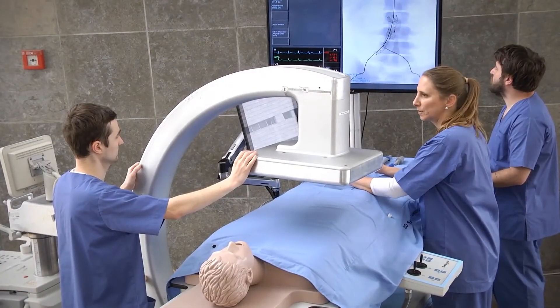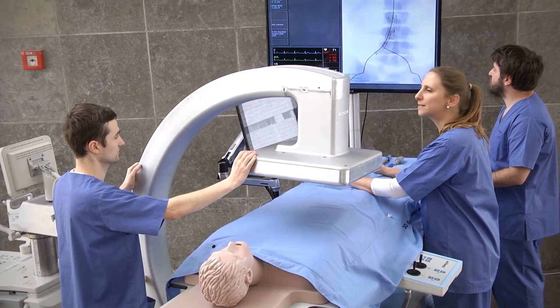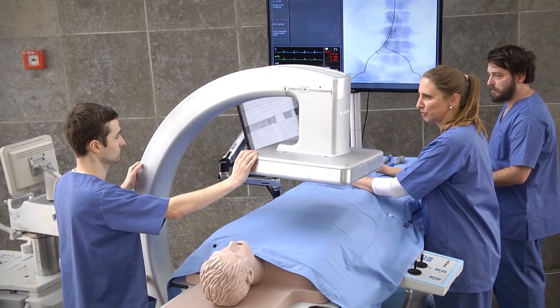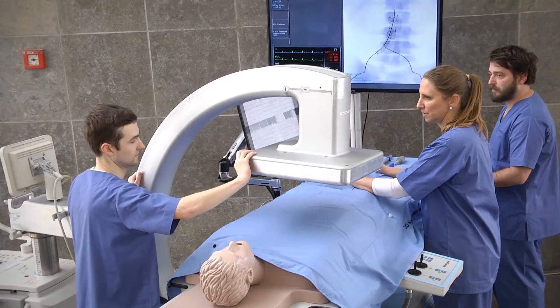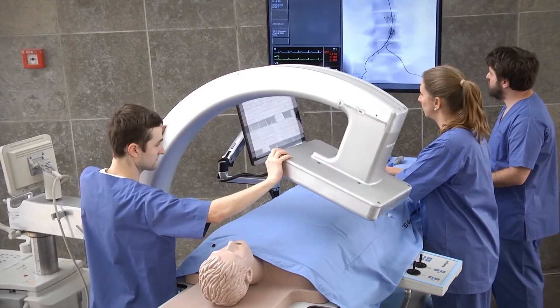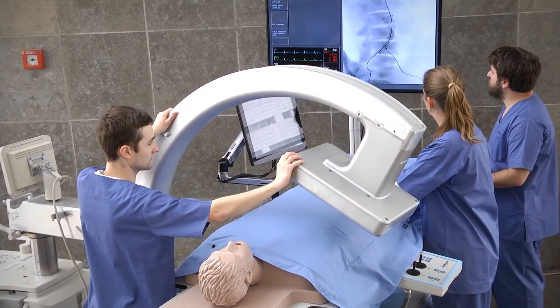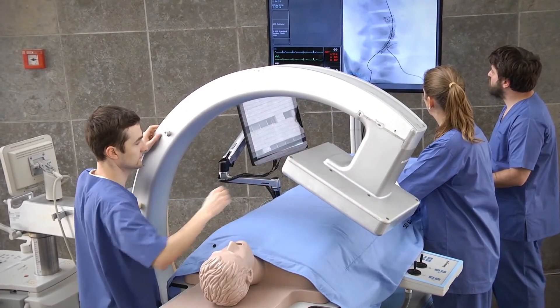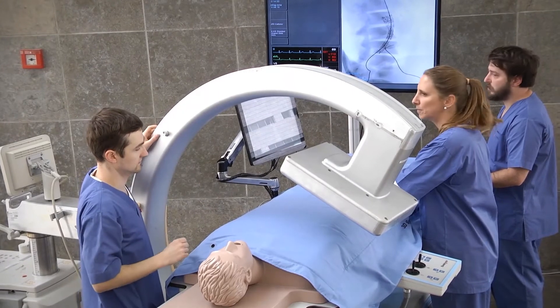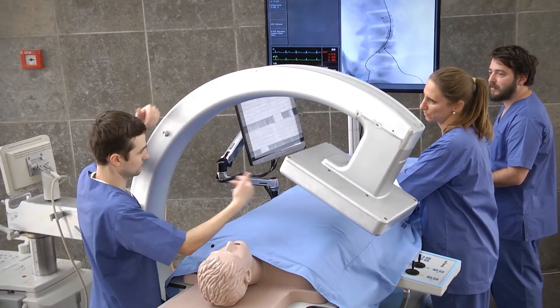Any mobile C-arm can be easily connected to the simulator to imitate a cath lab or operating room environment. C-arm rotation is reflected on the fluoroscopy monitor and communication with the x-ray technician is practiced.